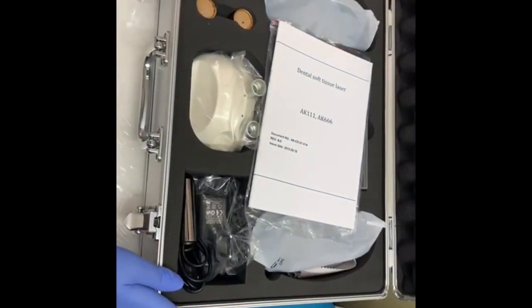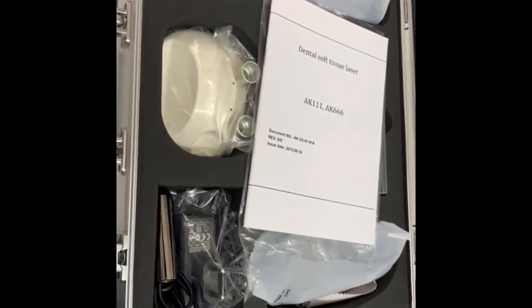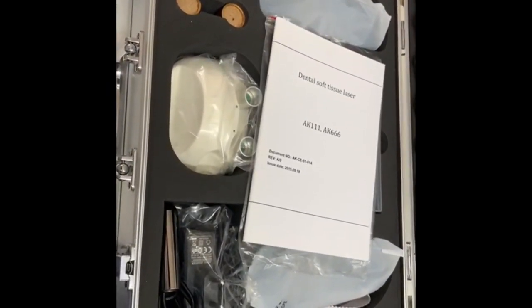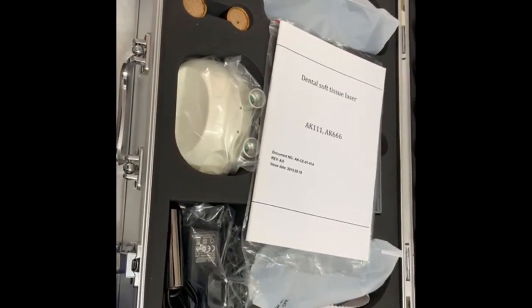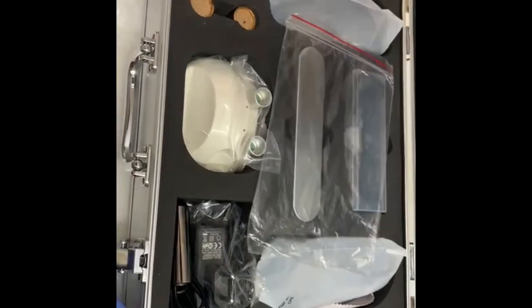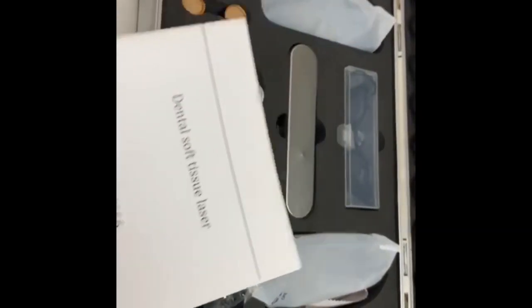So you know our soft tissue laser pens are used in gingivectomy, frenectomy, excision, in your perio pockets, endos, and there are many things like crown lengthening. It's written there in this manual. Let me show you what are the parts.